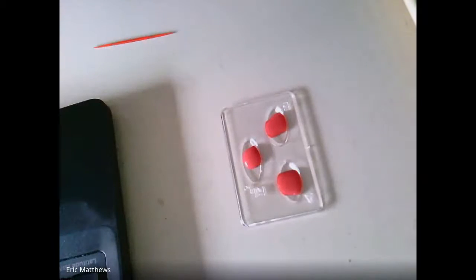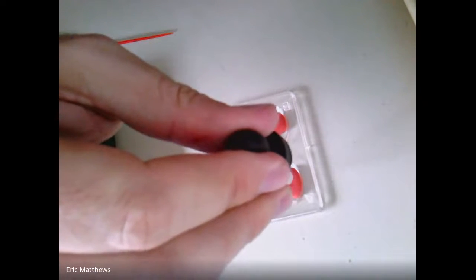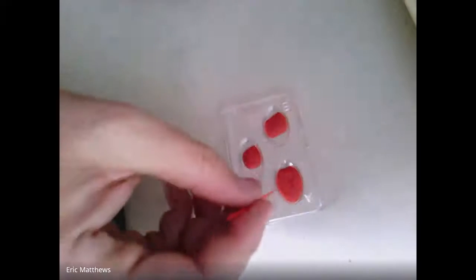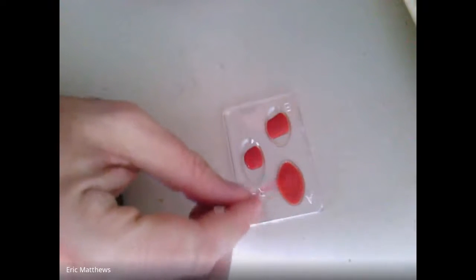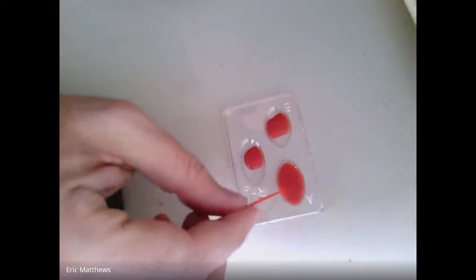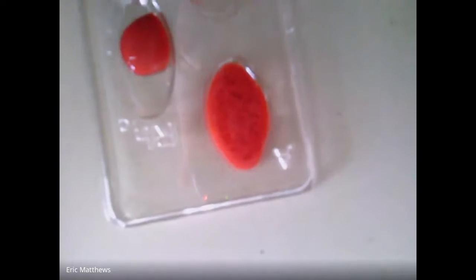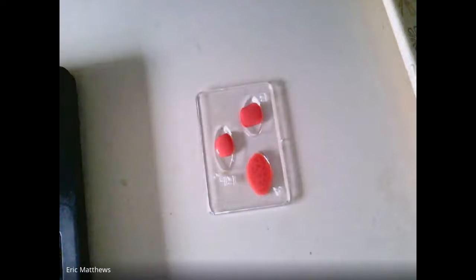So this is the antibodies against A. Just a couple of drops. And once we stir it up, you can see, I think, that it is getting chunky, that we're seeing differences in there.